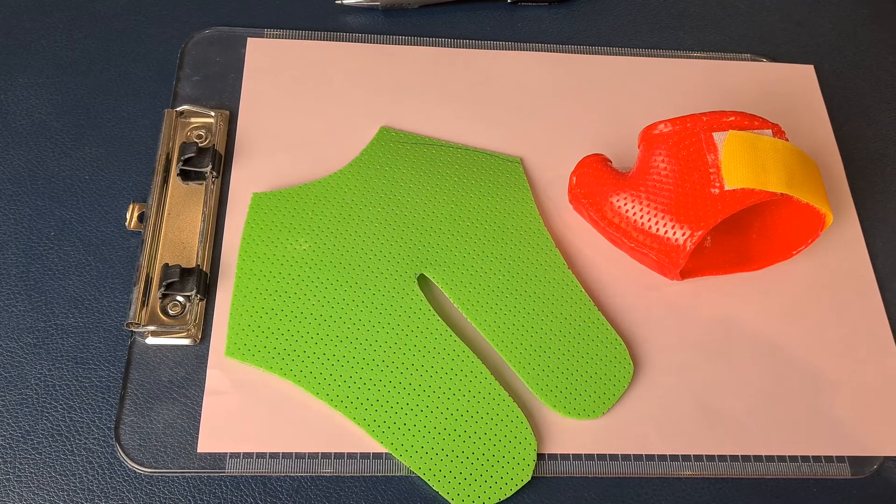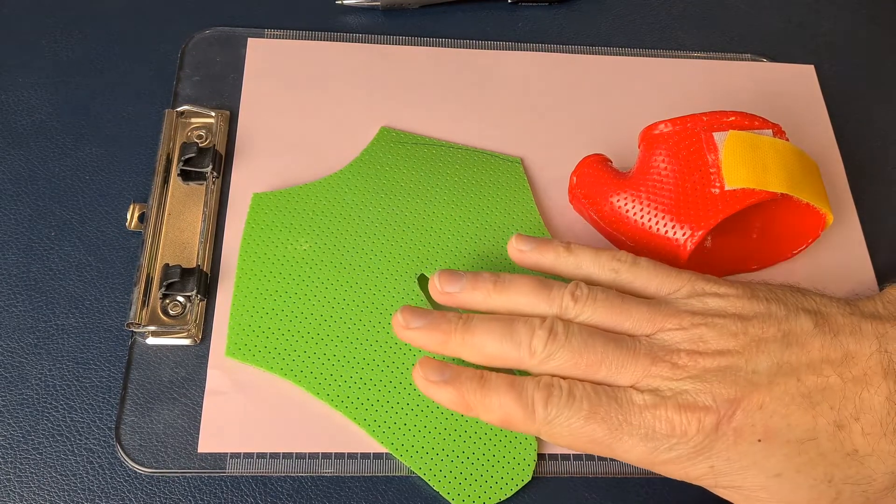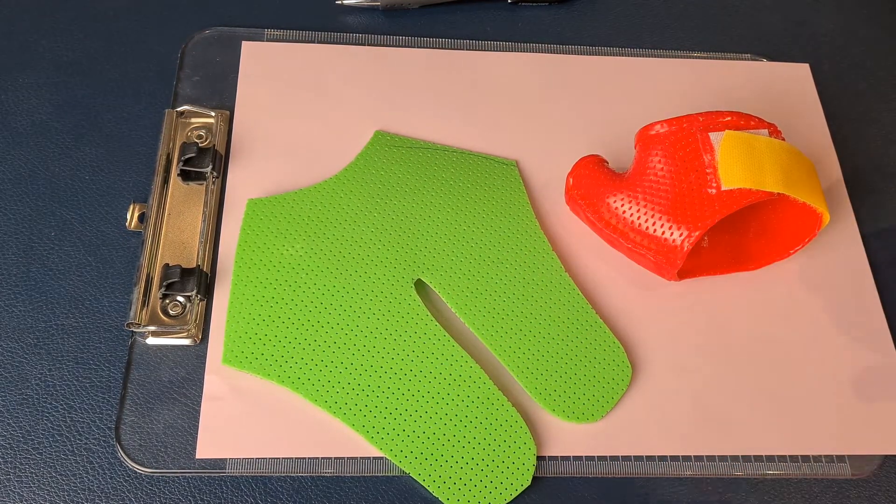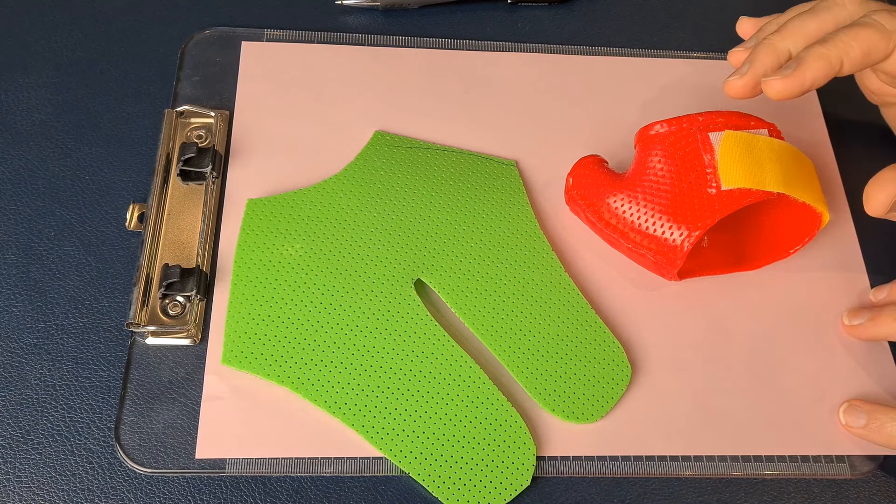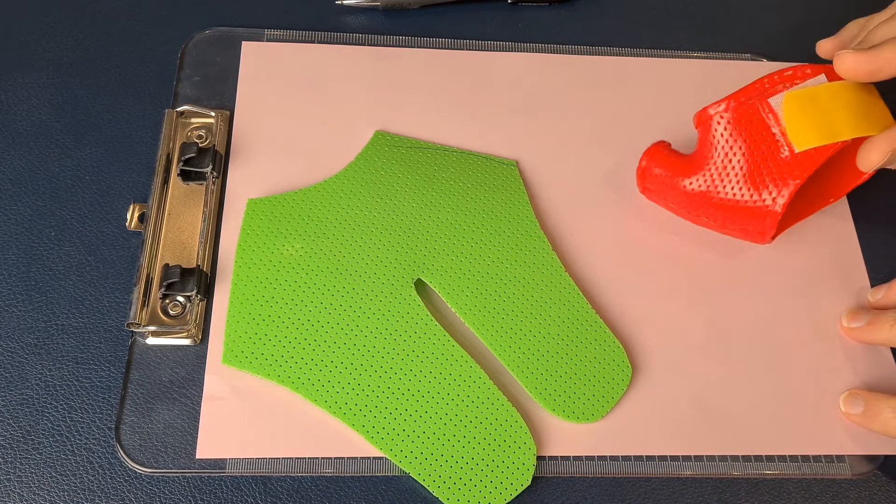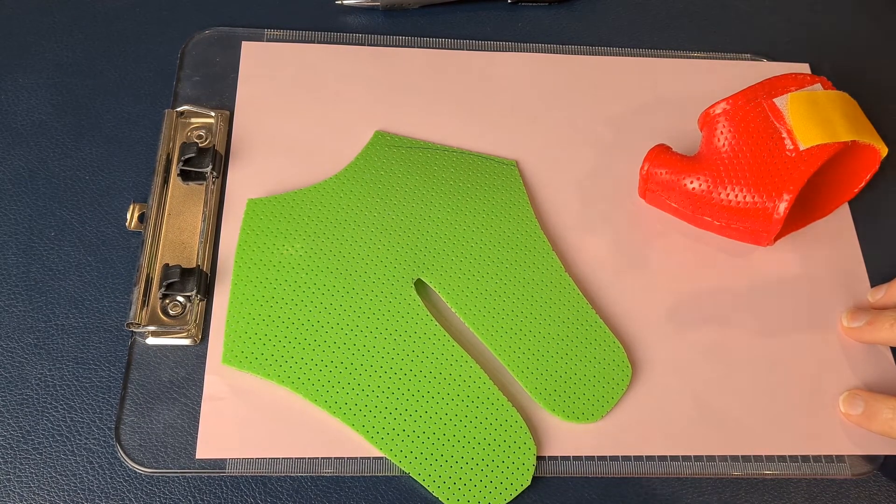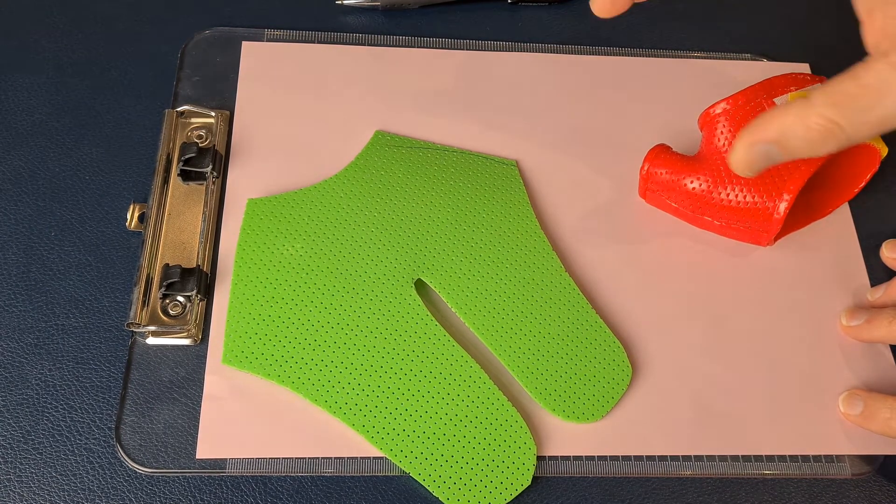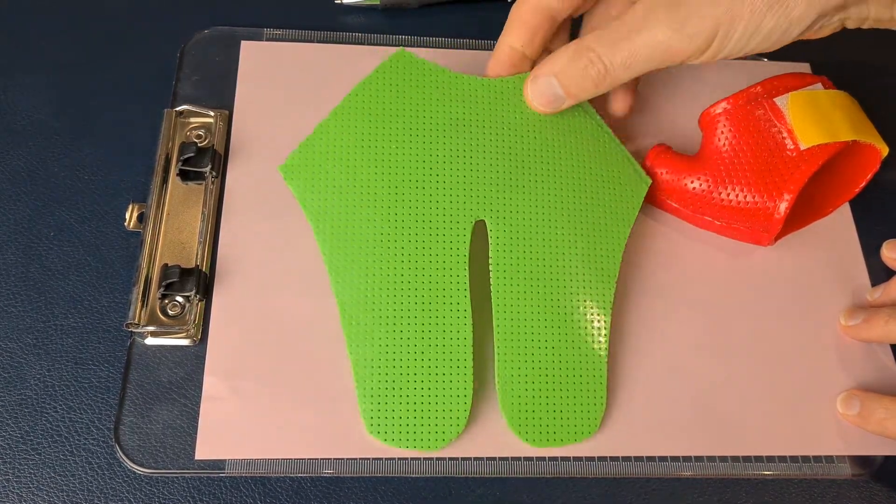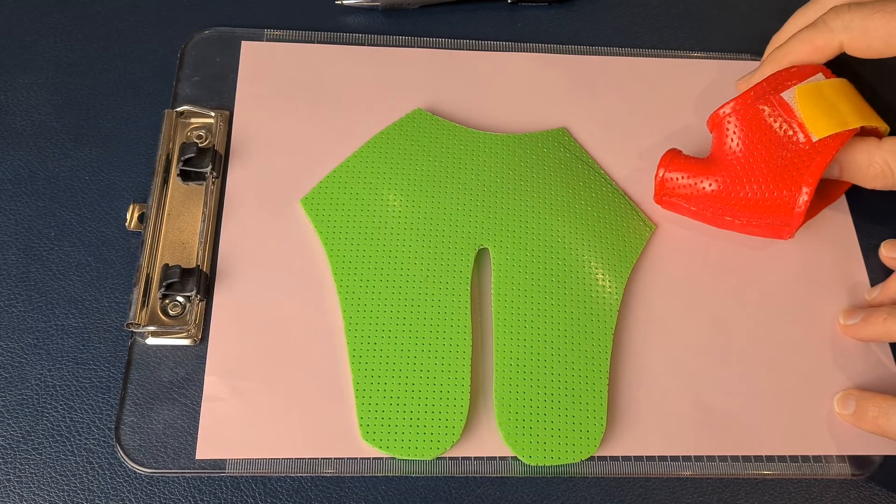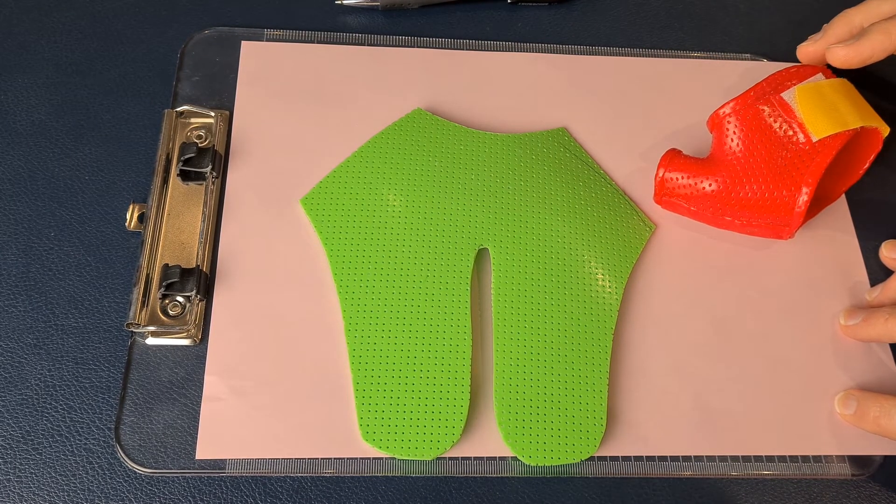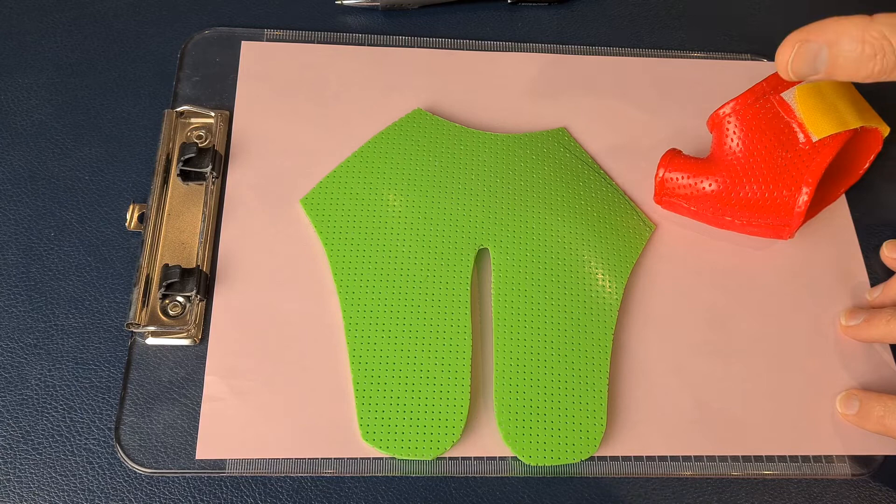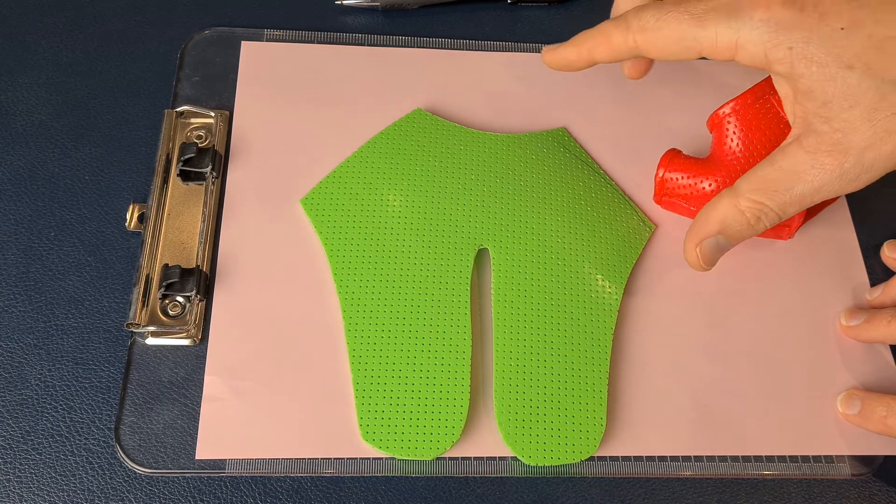We've had some queries about how to design or develop a splint template like this, and in particular how you can make sure it's the right size for your patient's hand. If you just want to copy that template, feel free to take a screenshot and trace or convert that however you wish, print it out, do whatever you want with it.